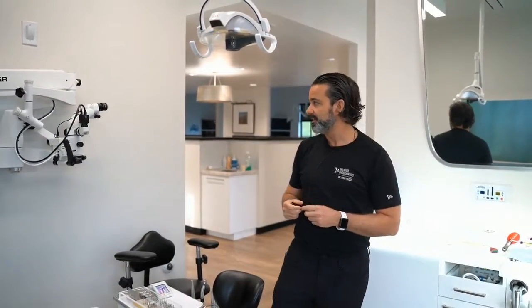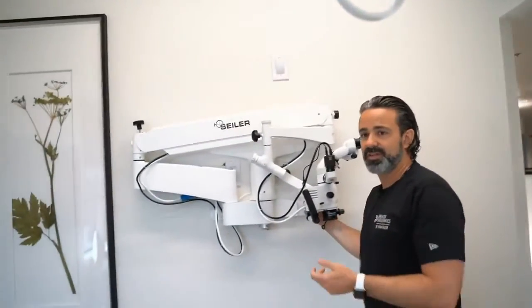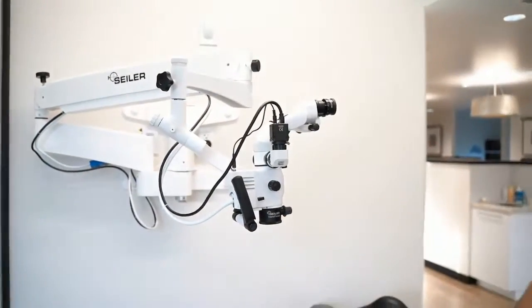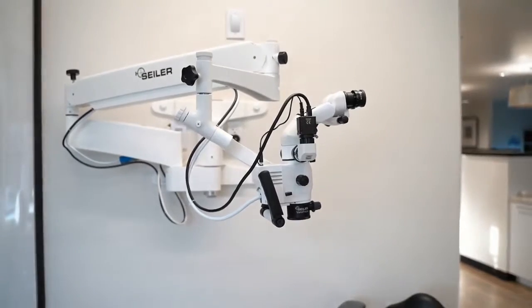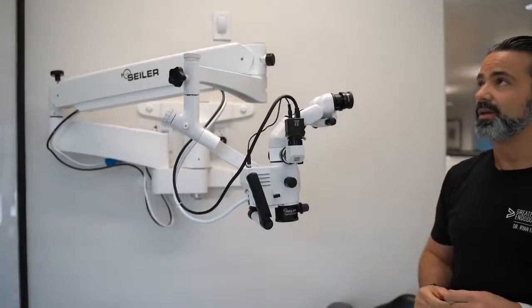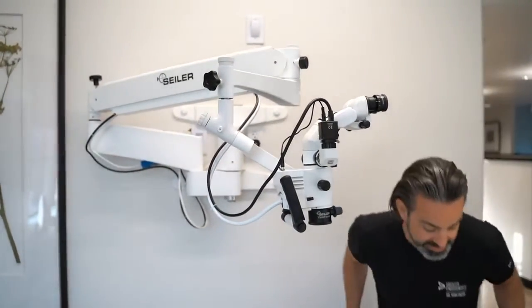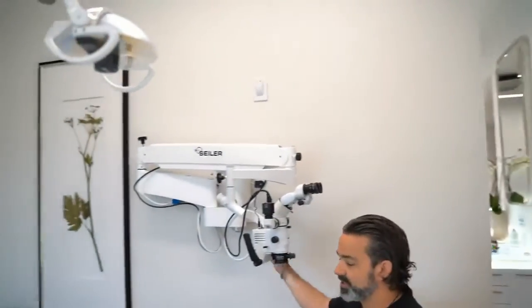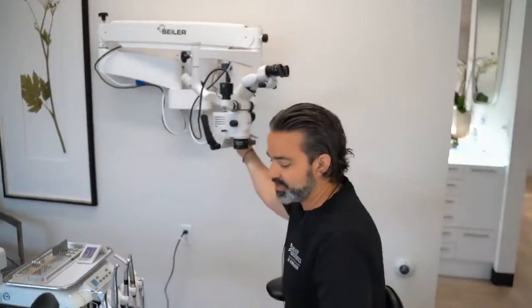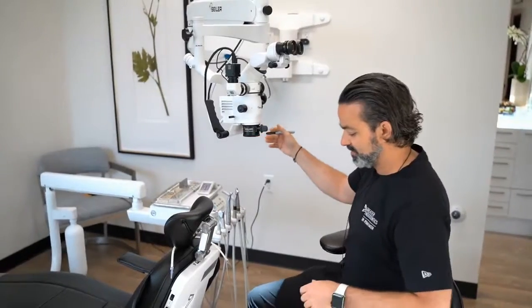Now the second thing is, let's take a look at this microscope. So arms and cords and things, that's really going to be room length. There's always a ton of configurations that you can do with that. And there's also configurations where people will go high mount, low mount. We talked about ceiling and floor. But I like it where when I'm sitting, it's just in my reach. So if I'm working like this, I want to be able to reach and bring it over. And I can put my patient down, my pretend patient. Do you want to give me a patient?